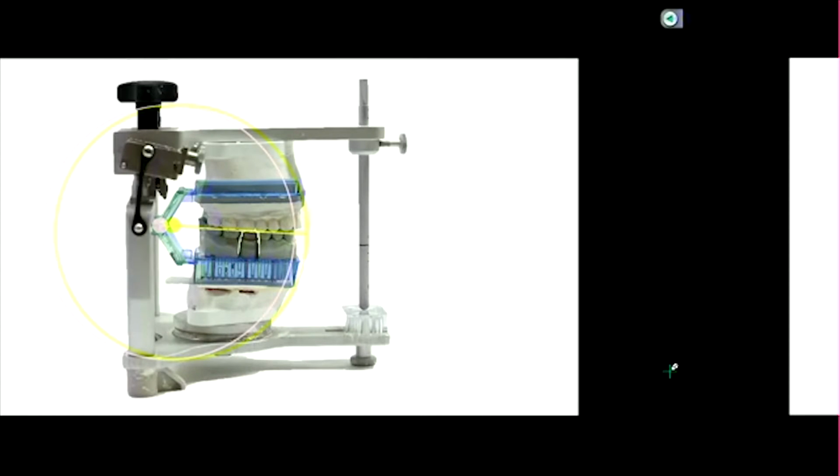If you overlay them together, we'll notice that at the point of contact, MIP position, remember I had my hand straight out, so whether I rotate around my shoulder or my elbow, my starting position is the same. You see where the lines intersect. But any movement away from that, you'll find that they take a different path.